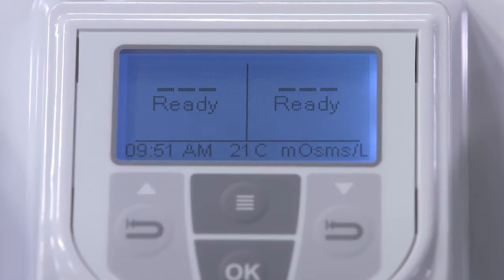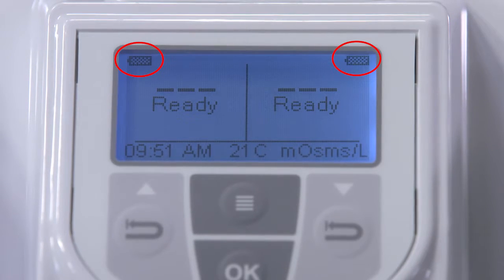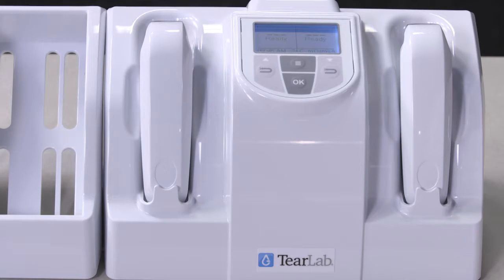If the pins are not fully charged, the battery icon will be flashing on and off. Recharge the pin battery by leaving the pin docked in the reader with the reader turned on for one hour.